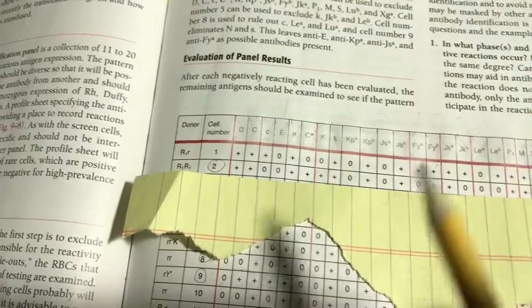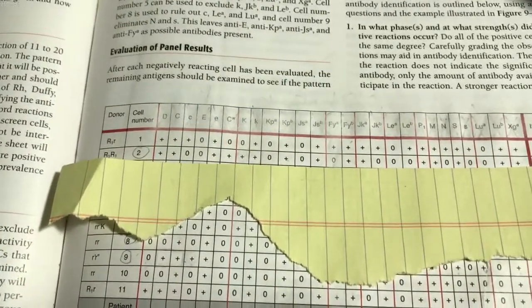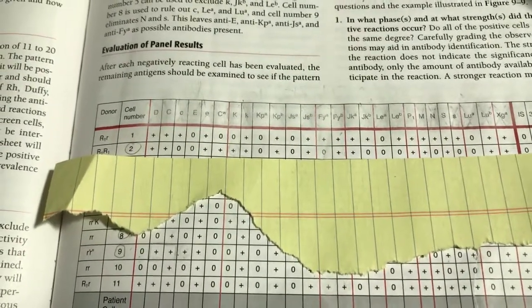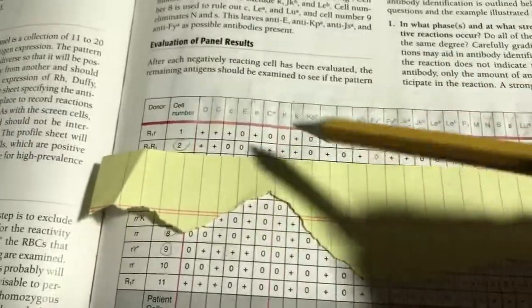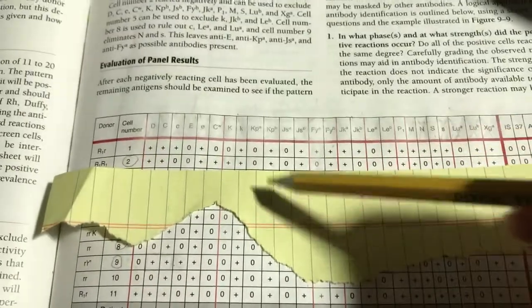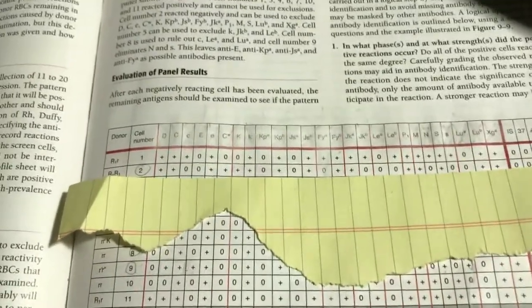So, we rule out with negative cells. And what do I mean when I say negative cells? I'm talking about there's no reaction with the donor reagent cell to the patient's serum or plasma. And again, that 3 plus is not a reaction, it's a check. It's not a reaction with the antigens. It's a check cell of the AHG confirming its negative reaction.